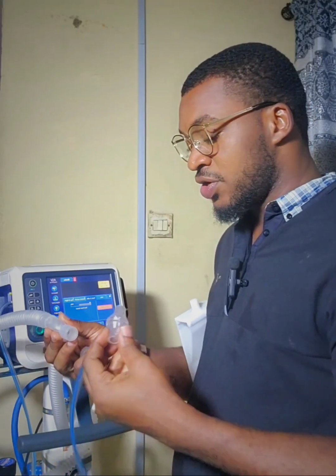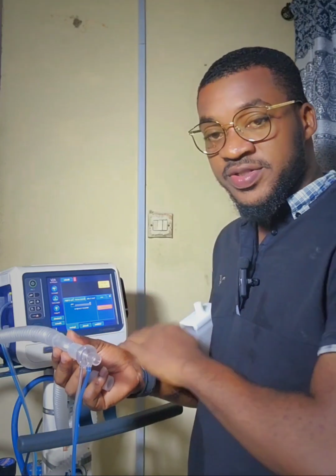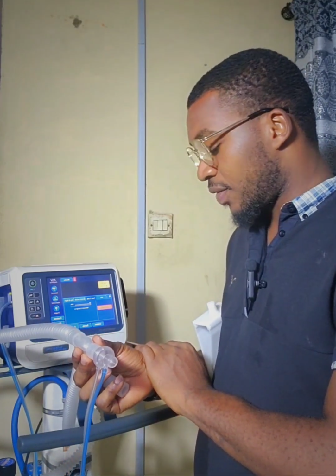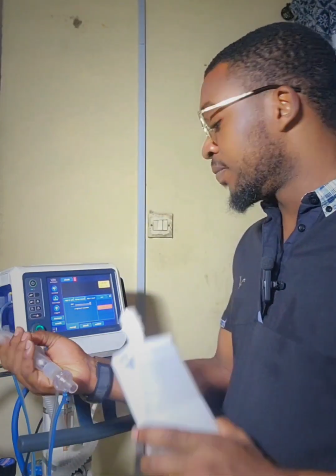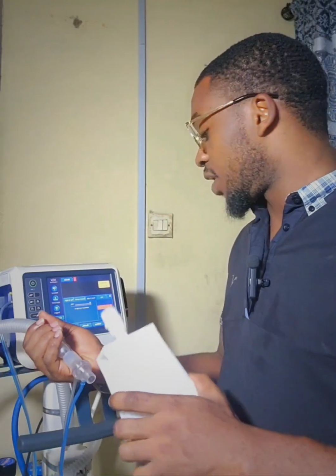Okay, so to turn the flow sensor again, you detach it and turn it to the other side. Maneuver in process, you hold on for some seconds while it maneuvers. Then you connect the patient source immediately after the information pops up on your screen. So it is important to always pay attention to what the device is telling you at every point in time while calibrating, for easy calibration.